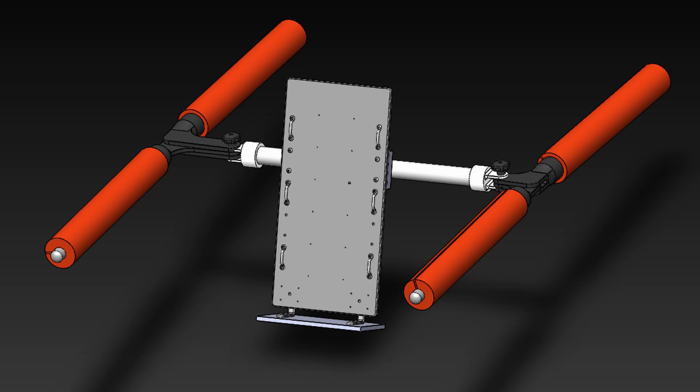This is the Aquatin HydroStandard device. Our team's goal was to adapt standing frame devices for use in aquatic therapy, making it easier to work with patients who suffer from peripheral limb and lower body disabilities.